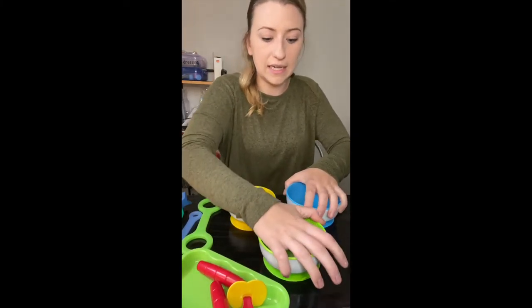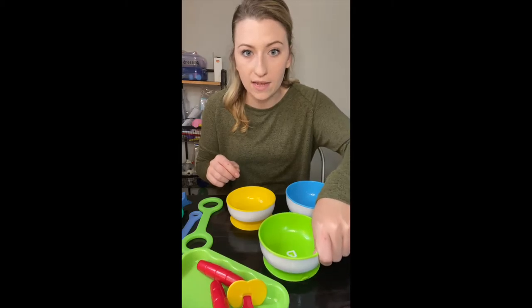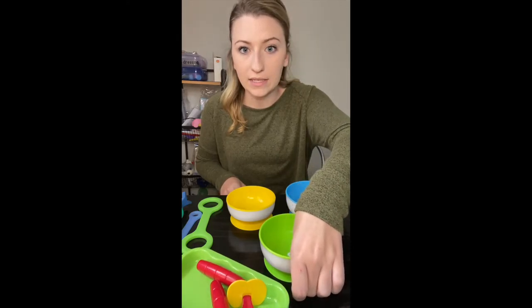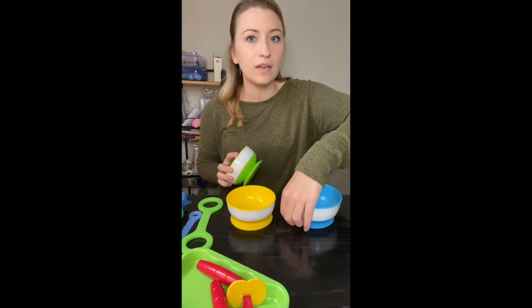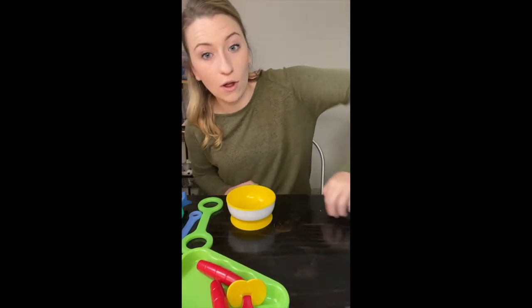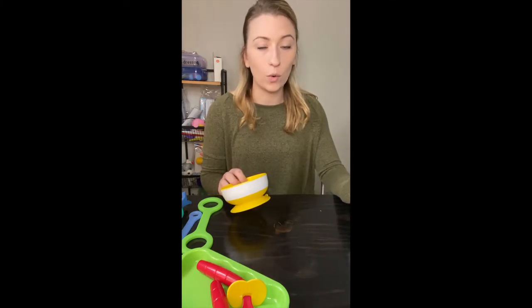You just suction cup them to the table. As you can see, I'm moving them and my whole table is moving — they're not going anywhere. When you want to release them, you go where the nub is and just pick it up and it unsuctions. Really simple. Anything that you can find that assists in a task — I'd call that adaptive or assistive. It's going to make the task easier for people who are trying to feed themselves but have a tremor or a coordination issue.